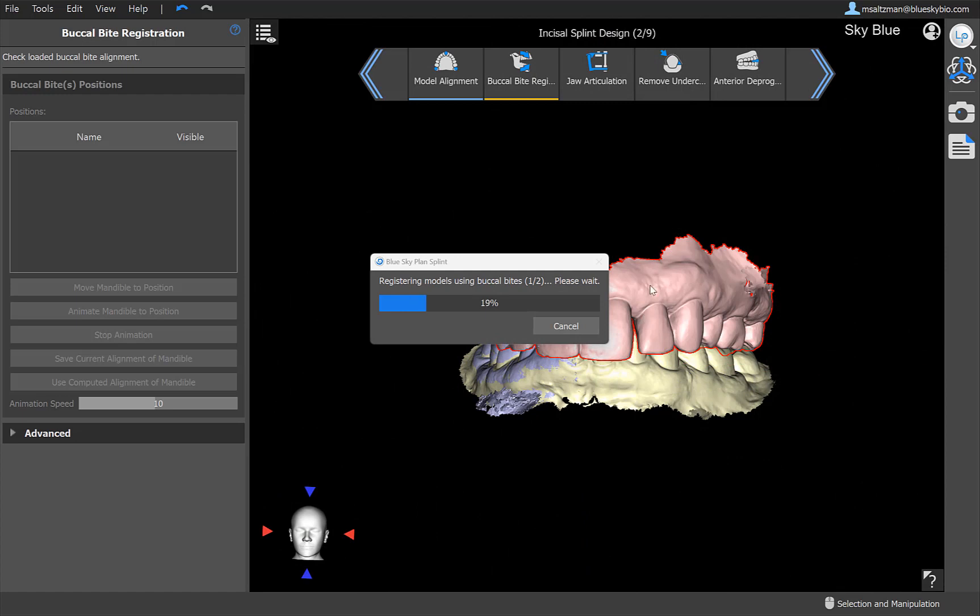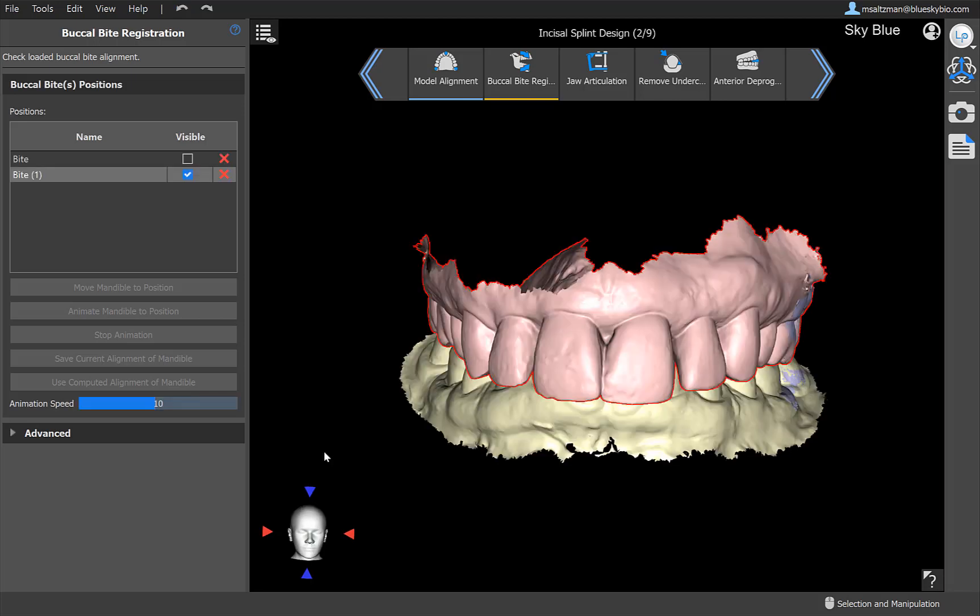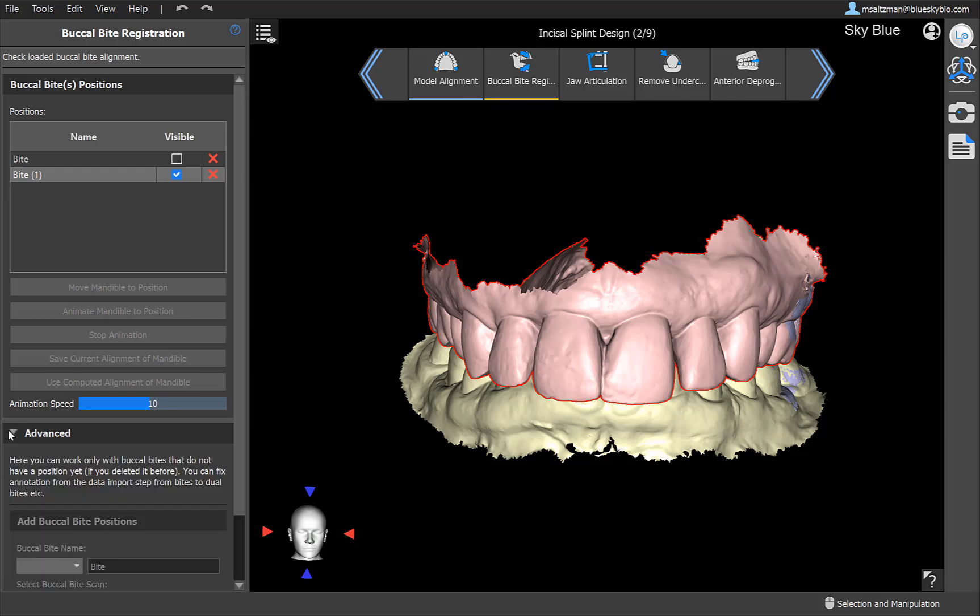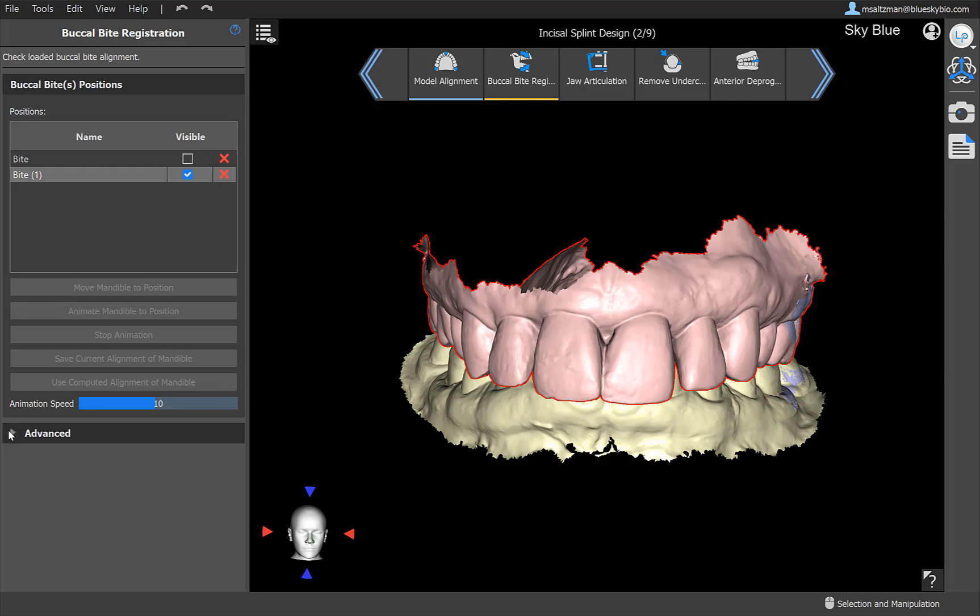In our situation, the models upper and the lower are aligned already. But since we imported the buccal bites, the software is automatically running the buccal bite alignment functionality. If you didn't import the buccal bites, then this wouldn't be relevant and you would just click on continue to the next step. There's actually a lot to be said about the buccal bite functionality. It's quite a powerful tool. You could align the lower model in different positions. You could see it move from bite to bite. You could see the collisions as it moves from bite to bite. And we have even more advanced functionality down below. But getting into that now would be a topic for a different video. I'm going to go ahead and click on OK.